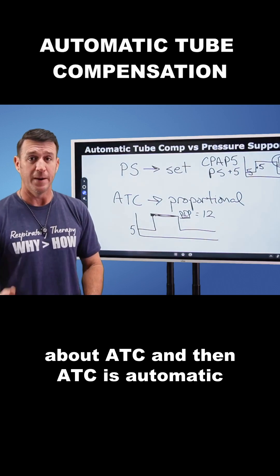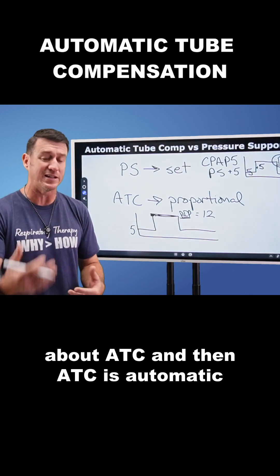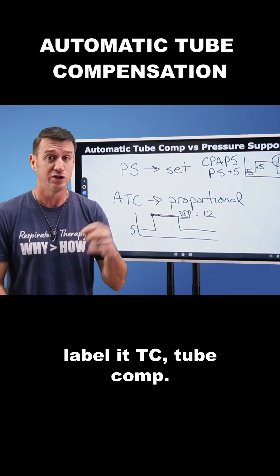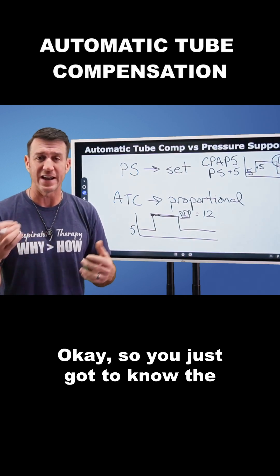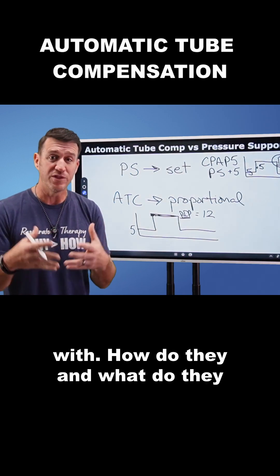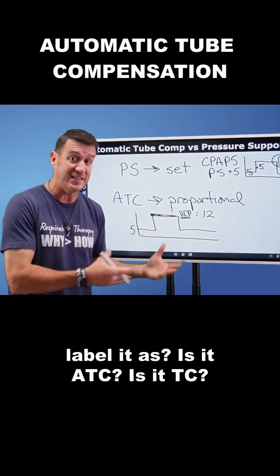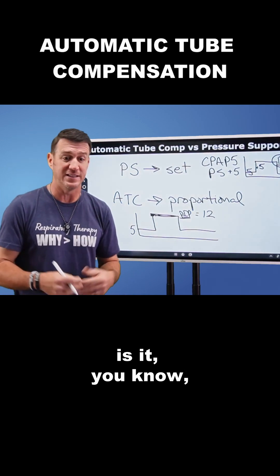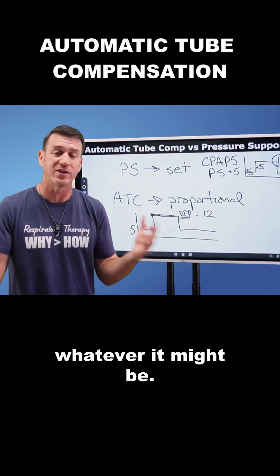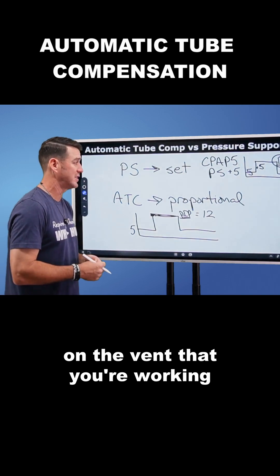The most important thing to note about ATC — automatic tube compensation — is that some ventilators label it TC, tube comp, or even just 'comp' with a small ET label, whatever it might be. You just have to know the ventilator you're working with and find out how it labels that feature.